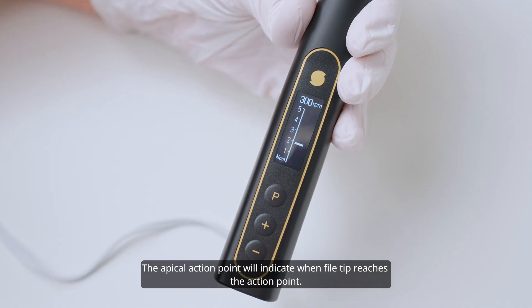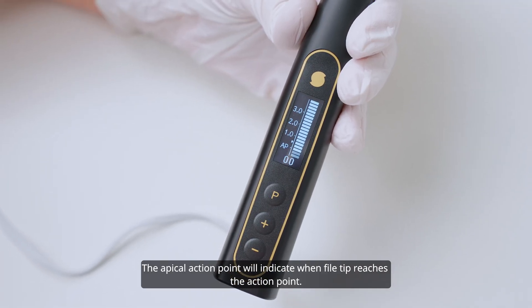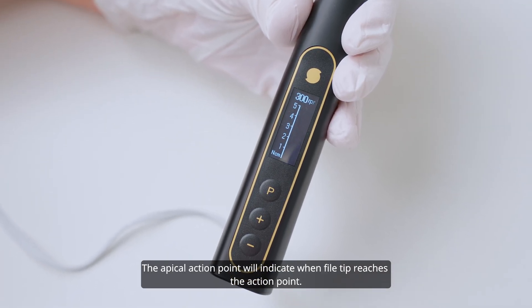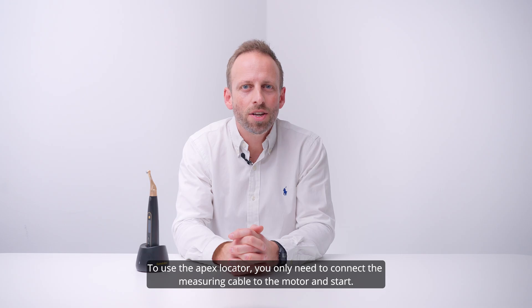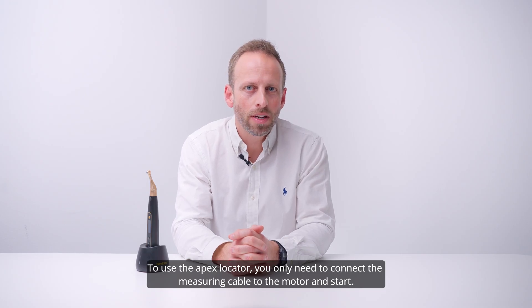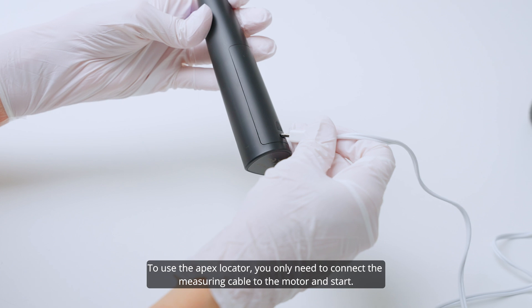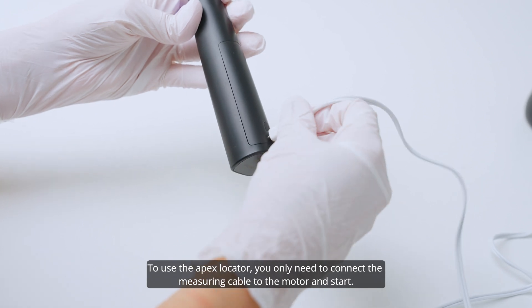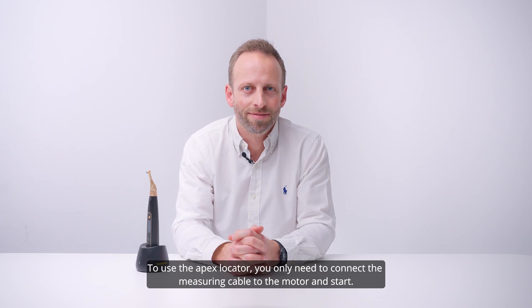The apical action point will indicate when the file tip reaches the action point. To use the apex locator, you only need to connect the measuring cable to the motor and press the on/off button.